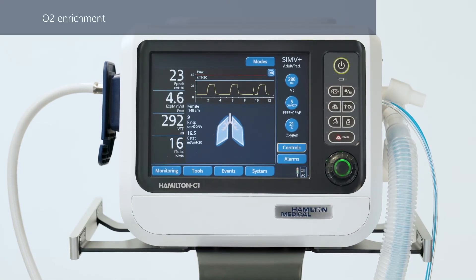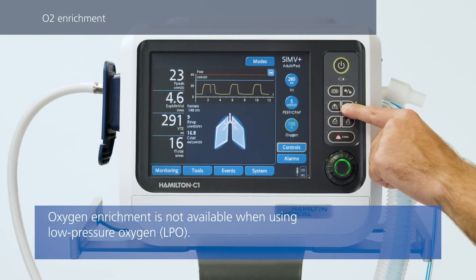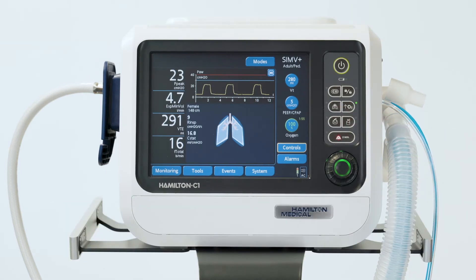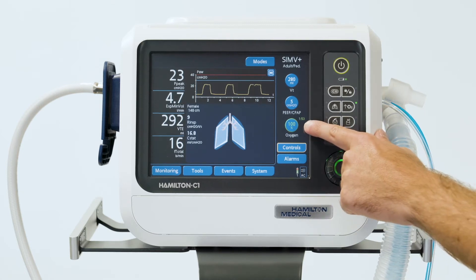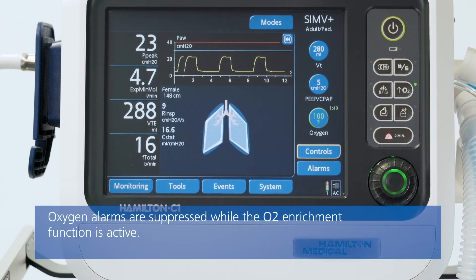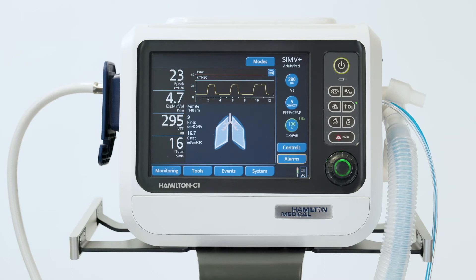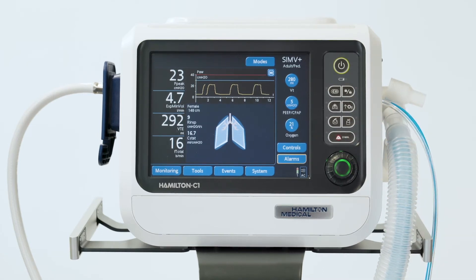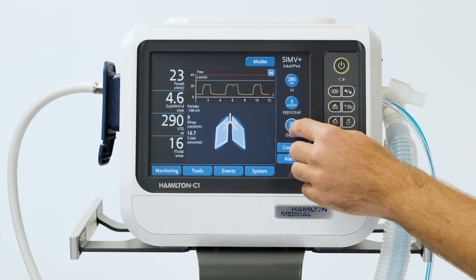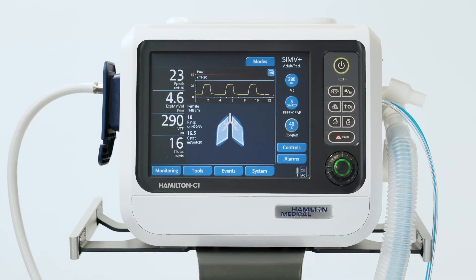If you want to increase the oxygen concentration temporarily, you can press the oxygen enrichment key. For the adult pediatric patient group, the Hamilton C1 delivers 100% oxygen for a maximum of 2 minutes. You can always see the oxygen concentration currently being applied, as well as a countdown timer. If you want to stop the oxygen enrichment earlier, just press the key again. The ventilator resets the concentration to the value previously set. You can always make ongoing changes to the oxygen concentration using the oxygen control.